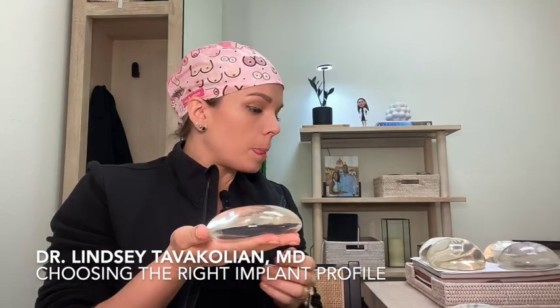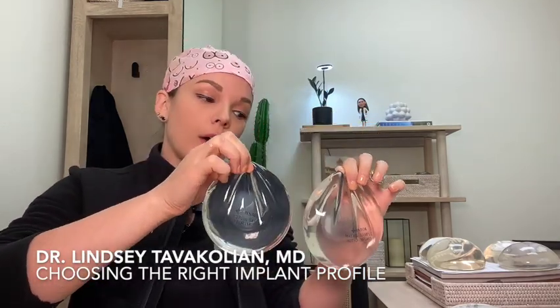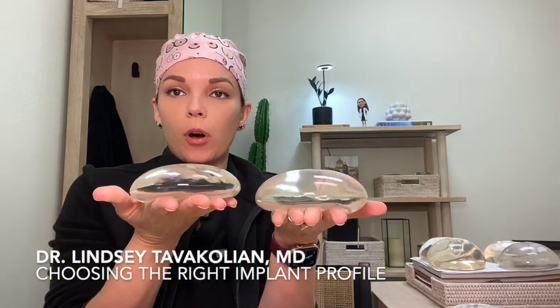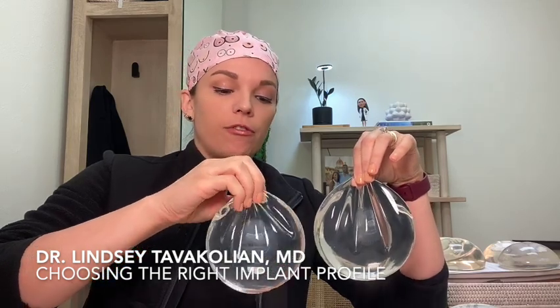I want to explain why a moderate plus profile implant can actually be wide or narrow. Here I have a moderate plus implant — it is 270cc's. Now I'm going to show you a moderate plus implant that's 405cc's. Look how different the diameter is. This is the same profile — moderate plus — but very different diameters. The volume is very different: 270cc's versus 405cc's.